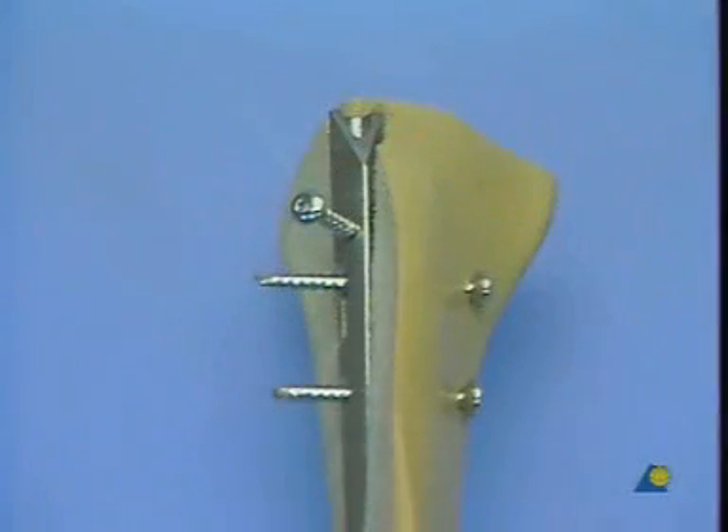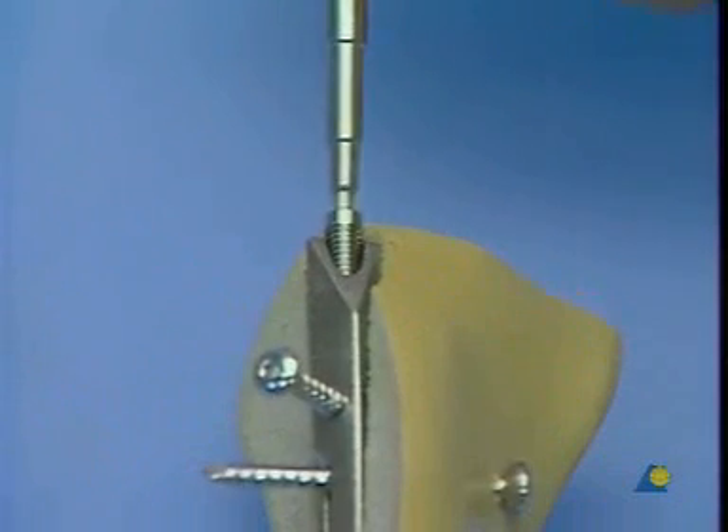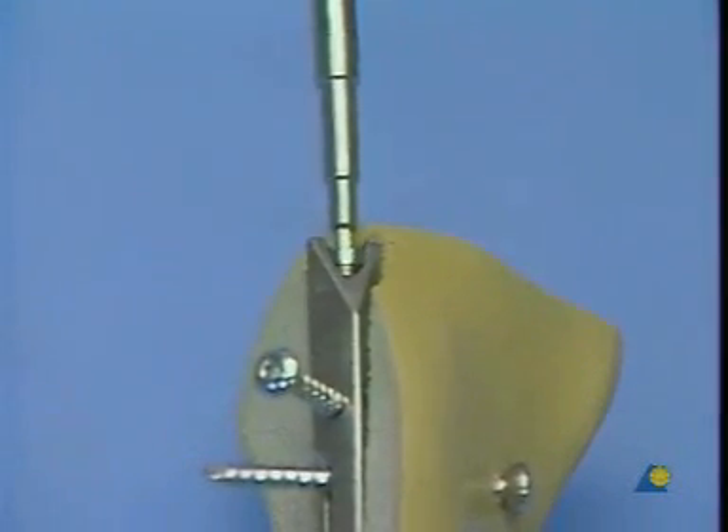This section illustrates the position and orientation of the proximal locking bolt. The sealing screw prevents tissue ingrowth into the proximal end of the nail and facilitates explantation after successful healing of the fracture.